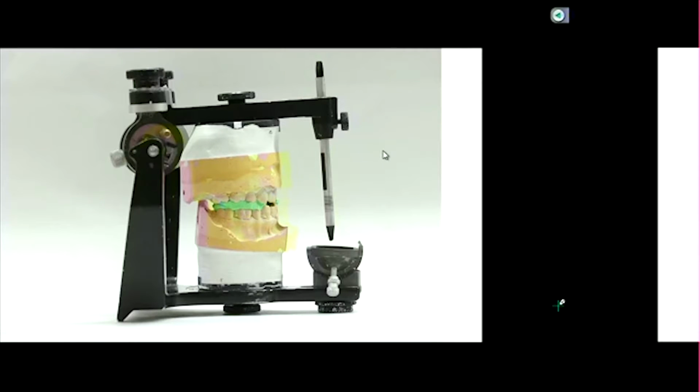As an average, usually we won't do this procedure. What we've done is we've accepted sort of an anatomical average, somewhere between 25 and 30 degrees. And because this is time-consuming, not many cases or dentists will go through this trouble to do it. Okay. What would we do if the patient doesn't have their front teeth, so they don't have anything to touch? Yeah, the whole point is that you want them in some protrusive movement. So at some point, hopefully they touch somewhere.